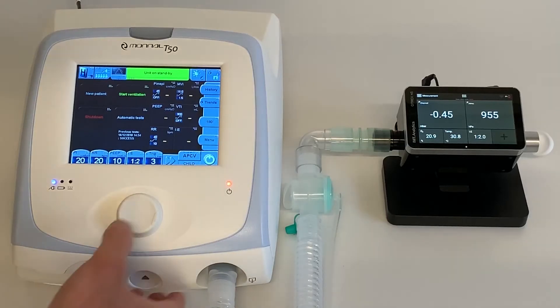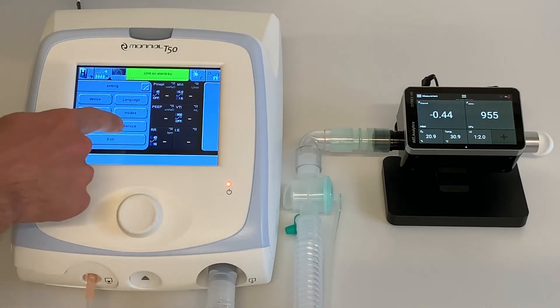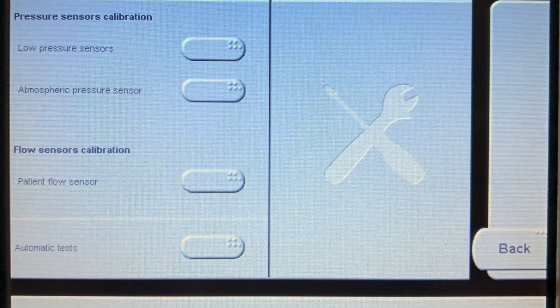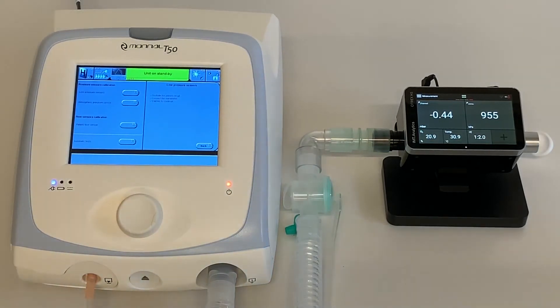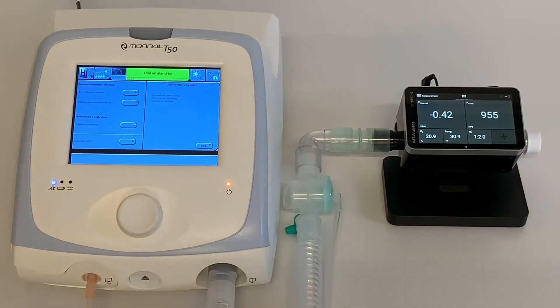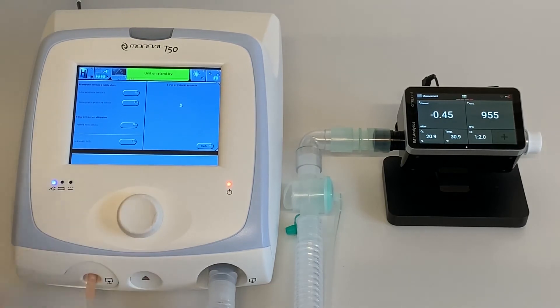The next measurement is Pressure Sensor Calibration. Enter the Service screen again and select Service, then select Calibration. Select Low Pressure Sensors under Pressure Sensors Calibration. Follow the instructions on the screen. Seal the gas outlet of the Citrex, then press the control knob to confirm.